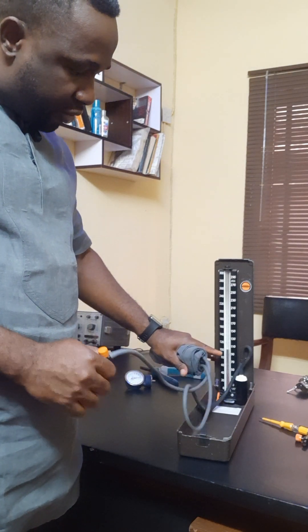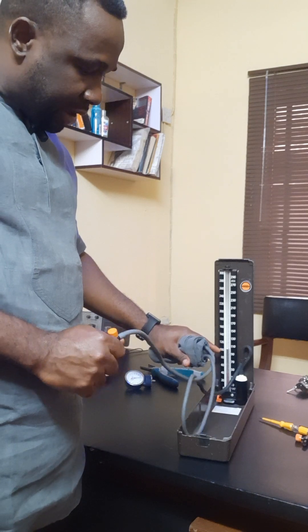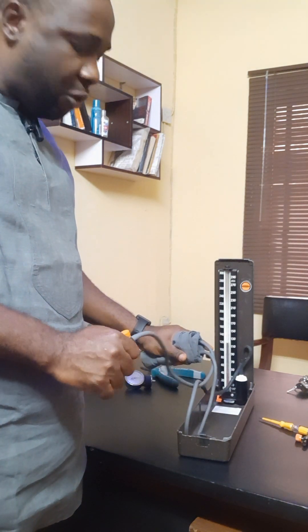The mercury cannot go beyond this limit. Why? Because something is wrong. We have to use a pragmatic, systematic approach towards finding the faults.